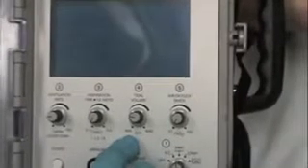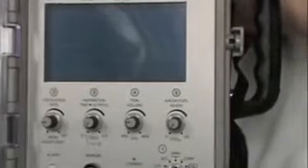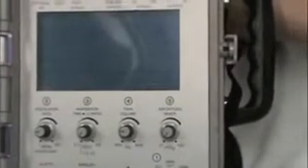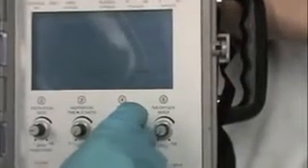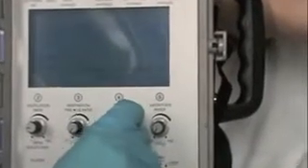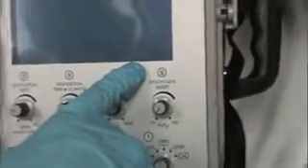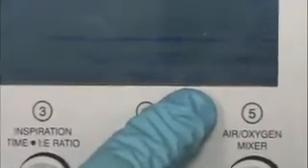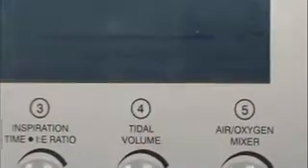We do the same thing with kids. There have been ranges that are as low as 6, as high as 15 cc's per kilogram for tidal volume adjustment. You should always start on the lower end of tidal volume, which gives you an opportunity to make sure you don't create trauma to the lung tissue. So we've set a tidal volume of almost 500 here. On this machine, you'll see a tidal volume that's set, and then a tidal volume that's delivered. So if you want to know that the amount you set is actually what's being delivered to the patient, you can see that measurement right here on the screen.